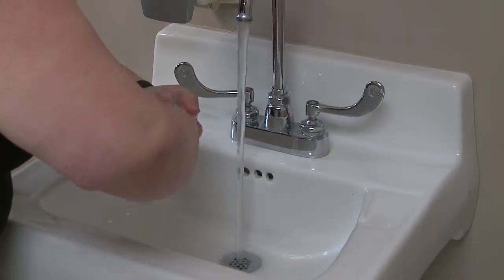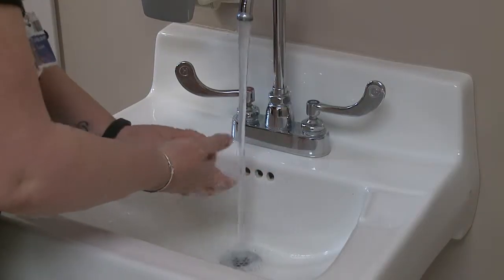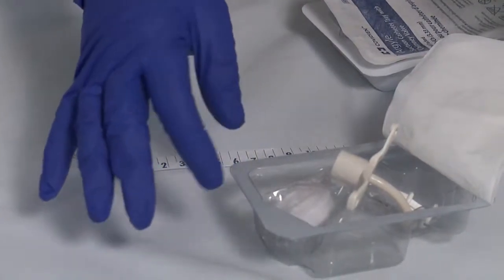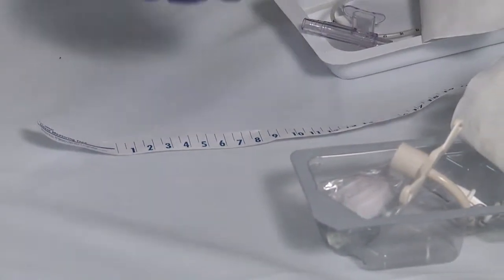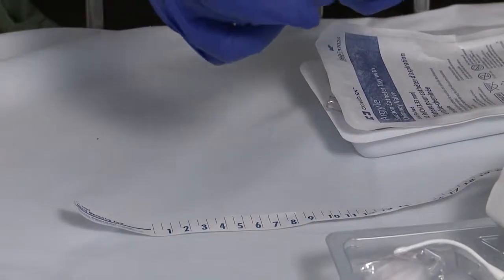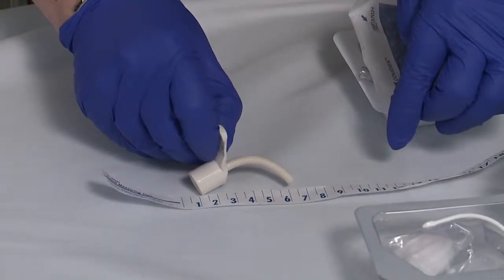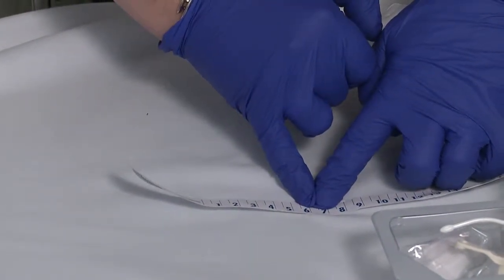Before touching your child's tracheostomy, always make sure you wash your hands thoroughly and completely. When you have your child coming home with a tracheostomy, you need to be aware of a safe suction depth for suctioning. You need to make sure that you measure out what your suction catheter will go to. You do that by taking a spare tracheostomy and measuring it from hub to tip with a measuring tape. You can see that this would be about 6 centimeters.